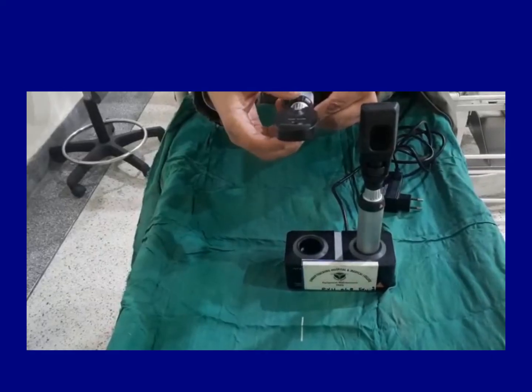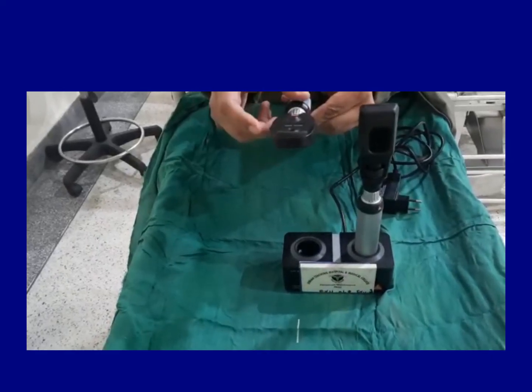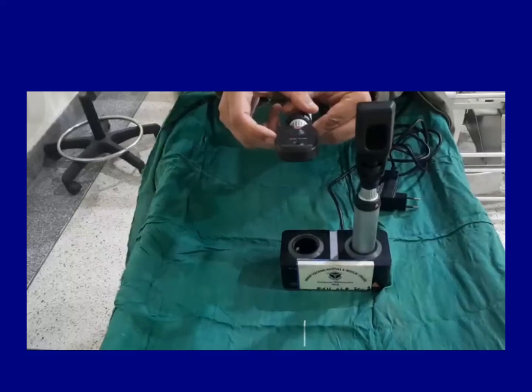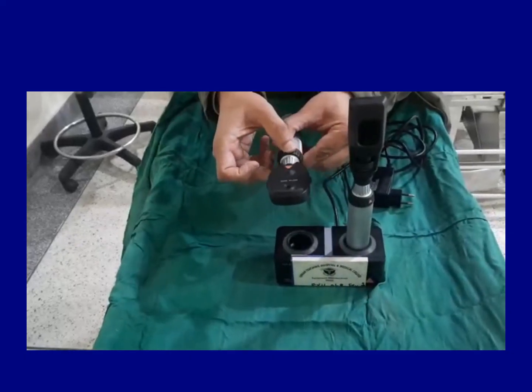So these are the different parts of the ophthalmoscope and uses of the ophthalmoscope. And again, I turn it and it is turned off.